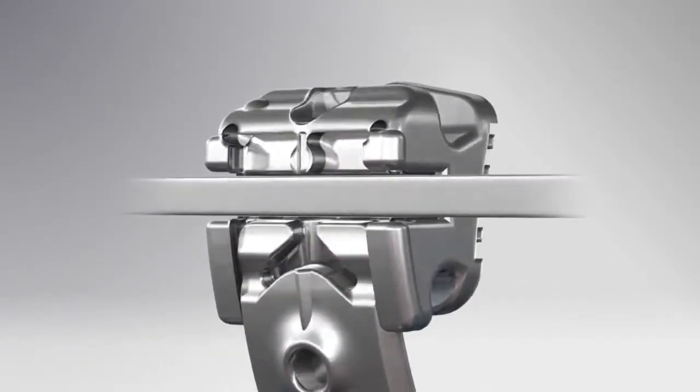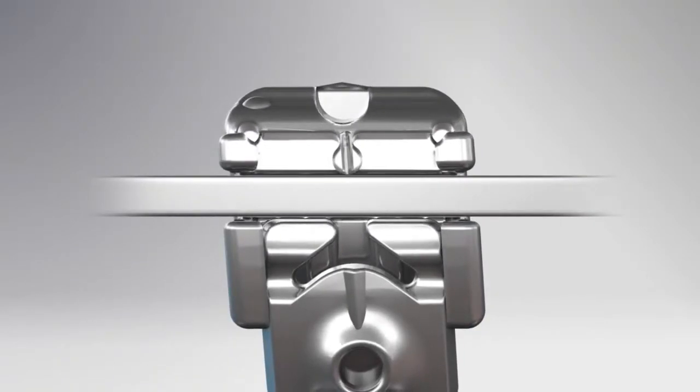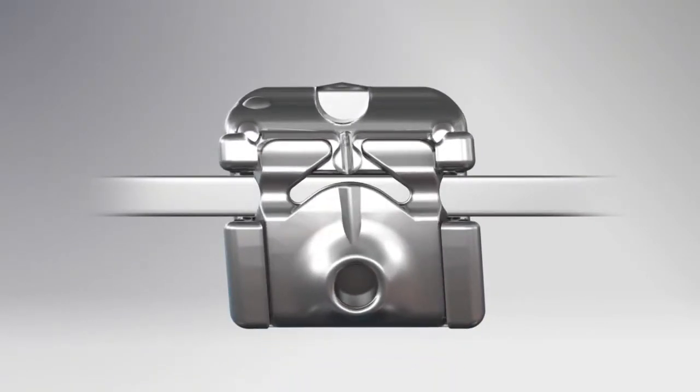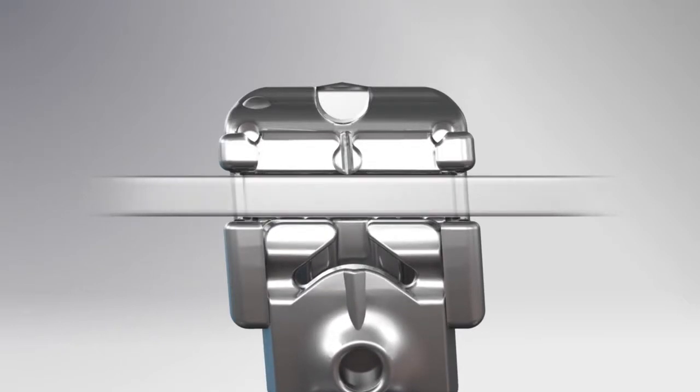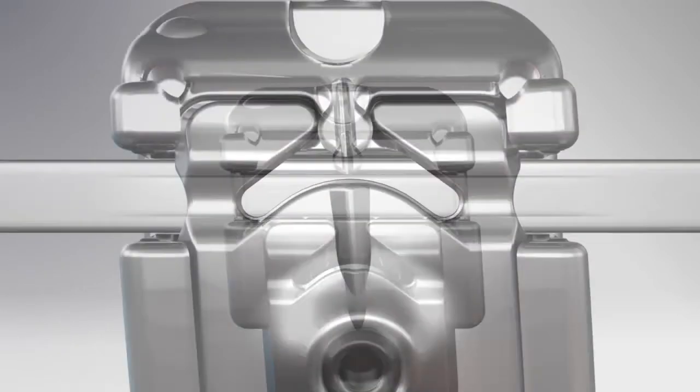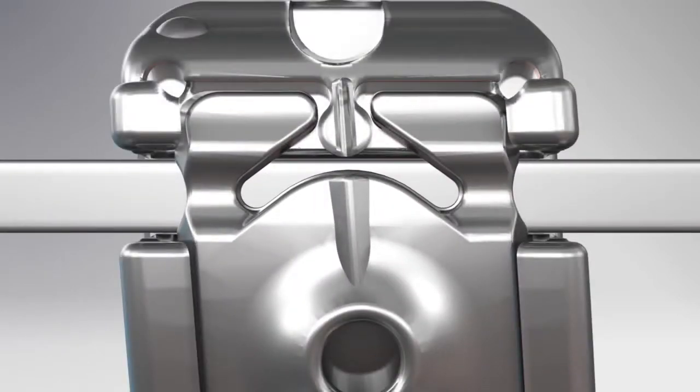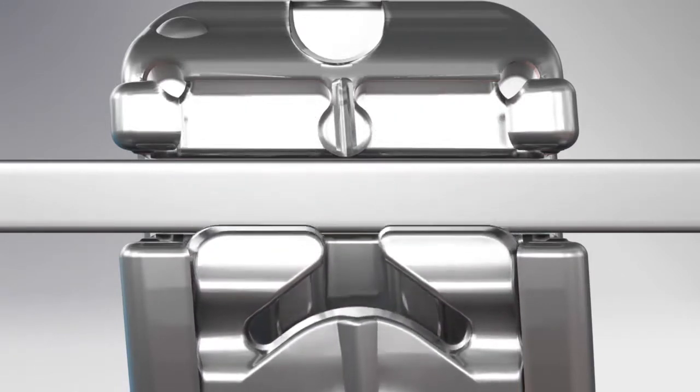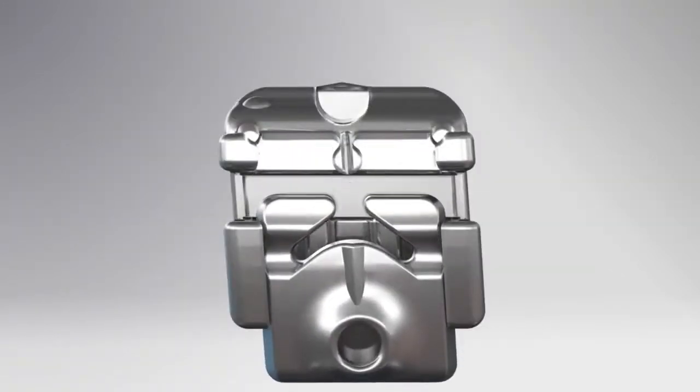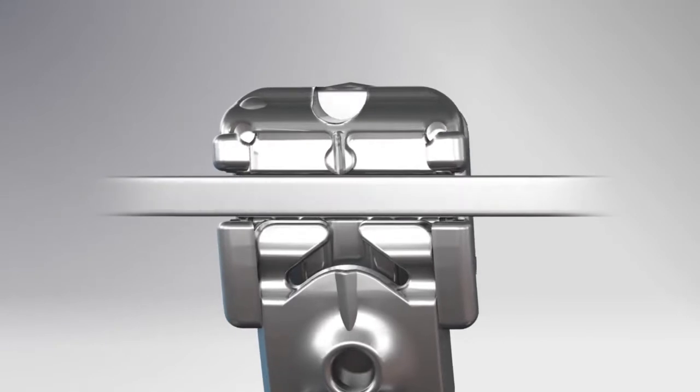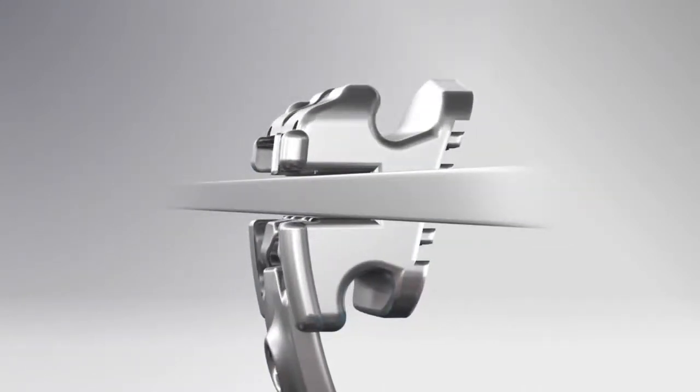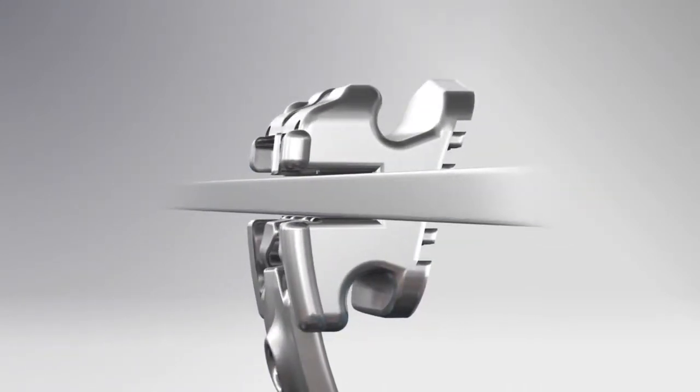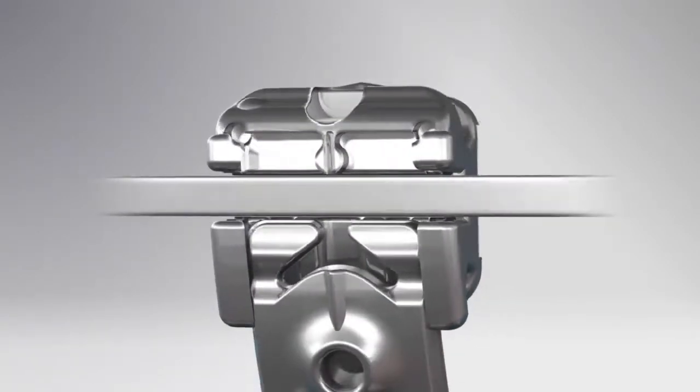The new and improved patented X-Grip and spring mechanism design contained within the door produce a consistent open-and-close force, providing smooth and reliable opening and closing throughout treatment with less likelihood of binding. In addition, the audible and tactile clues allow you to know when the door is fully closed or fully open. You will also feel and hear the door snap to close.